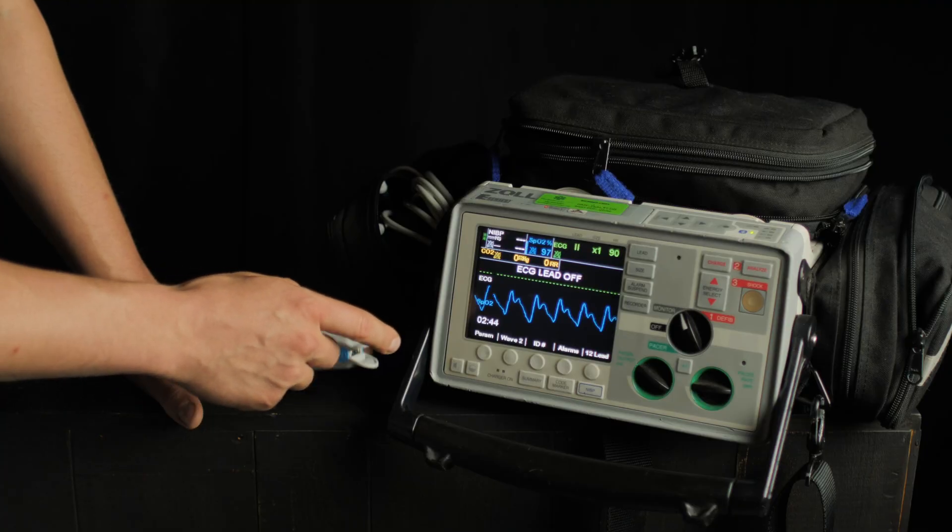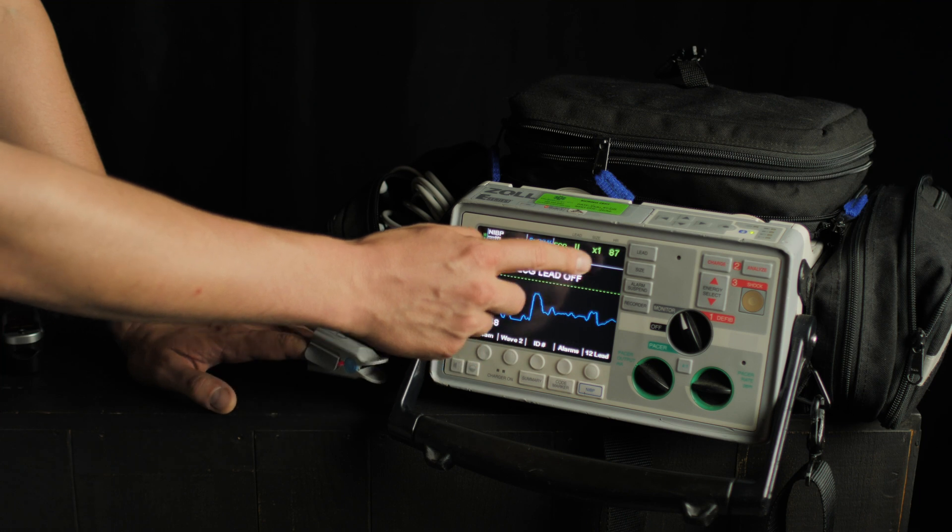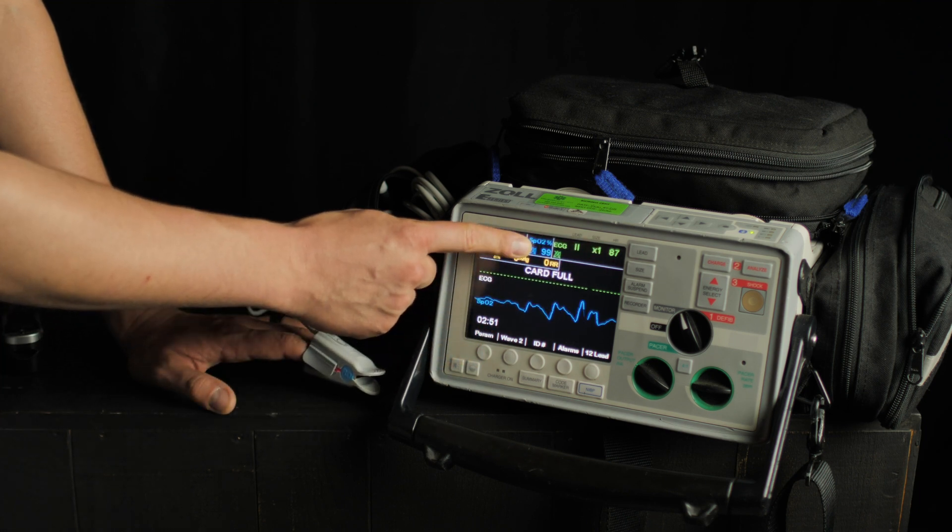There are several ways we can get false readings with a pulse oximeter. Any shaking or movement can give a false waveform and a false number. Make sure the patient is staying relatively still — small movements won't affect it greatly, but significant movement, seizures, or similar activity means that number may be off.